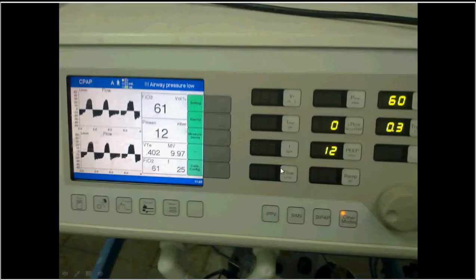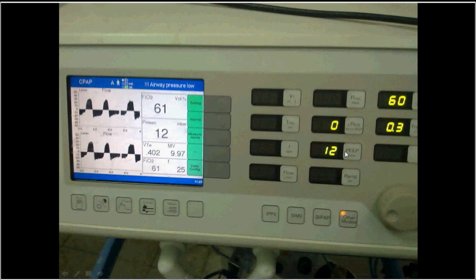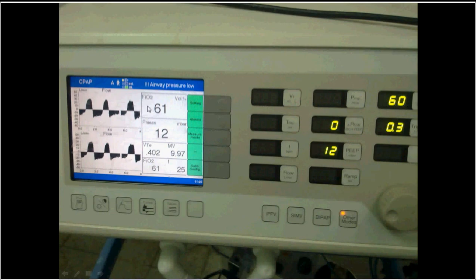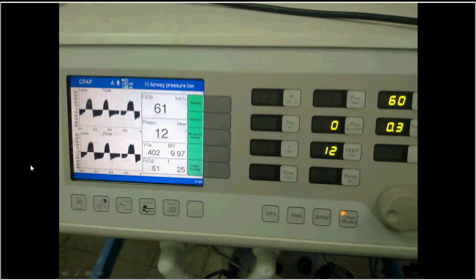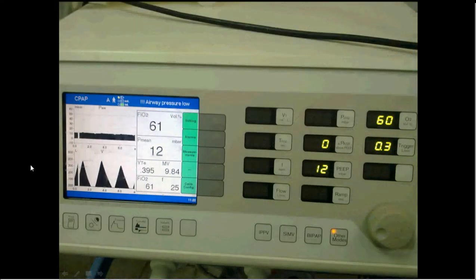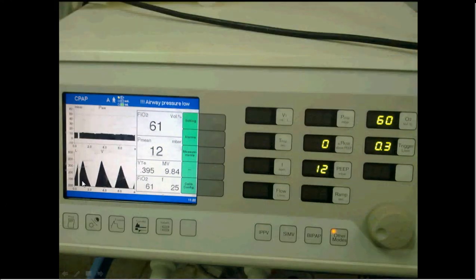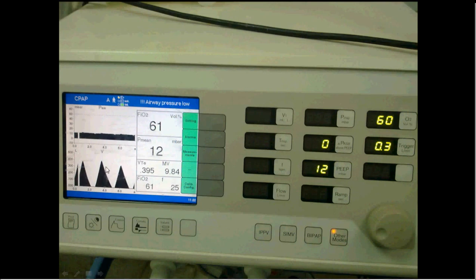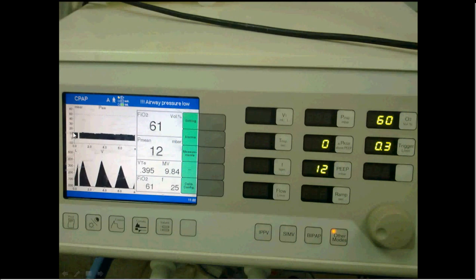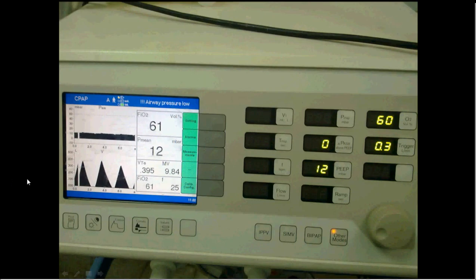Looking at another waveform example: this shows the set CPAP value, the patient flow, and the tidal volume, which is variable — sometimes larger, sometimes smaller. The pressure-time curve is just oscillating around the set CPAP level.